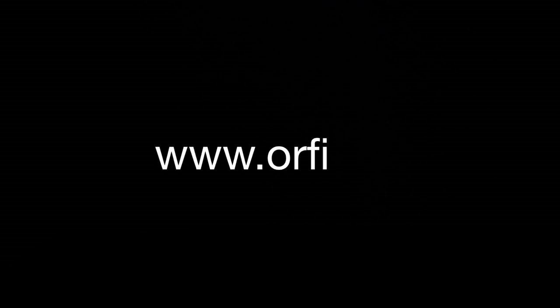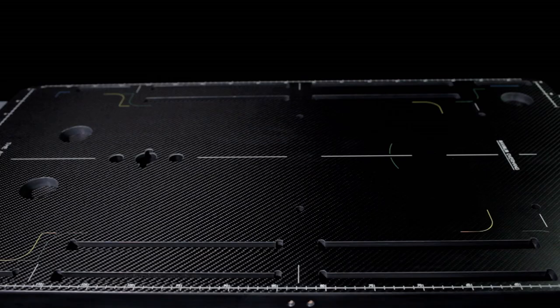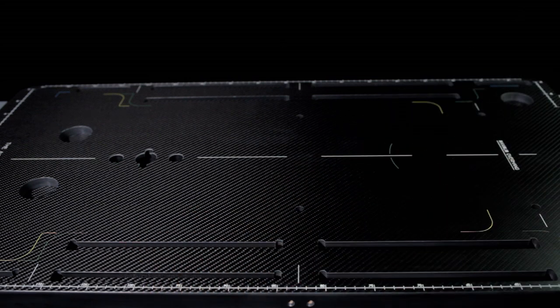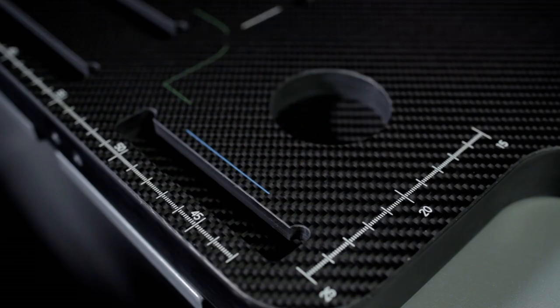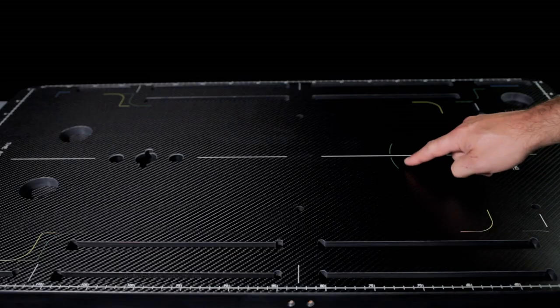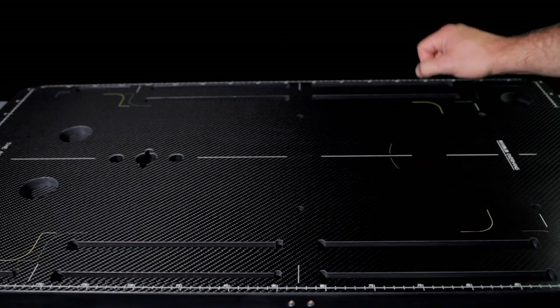For further information, please visit our website. The base plate has a number of slots allowing the immobilization mask to be attached. The plate also has color markings to help position the various AIO cushioned sets.